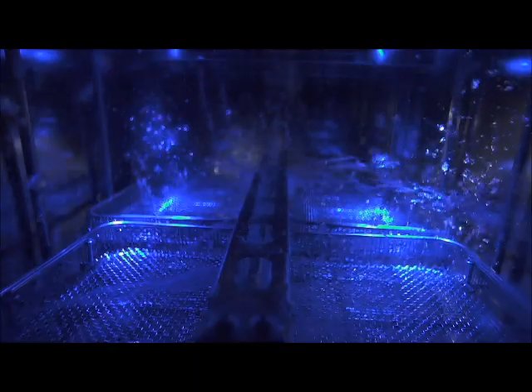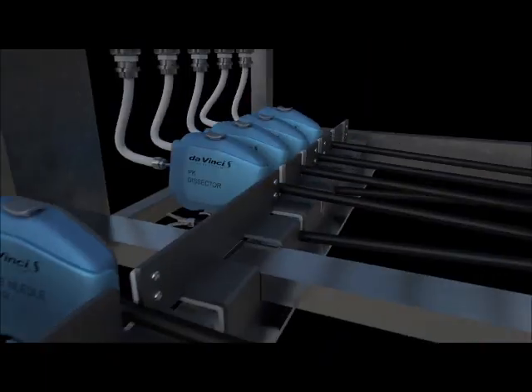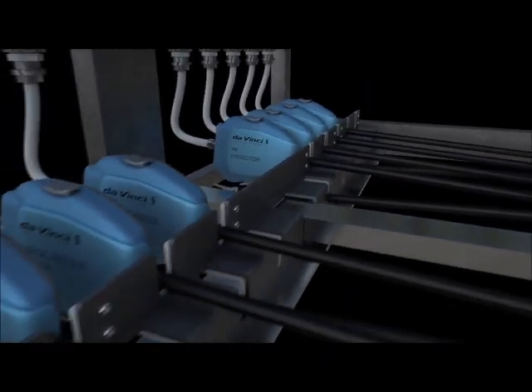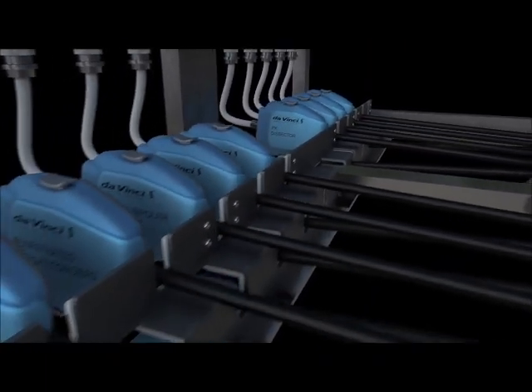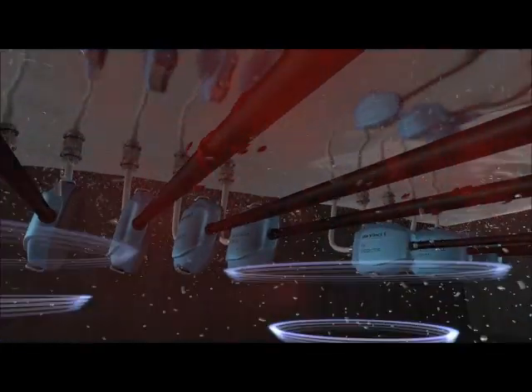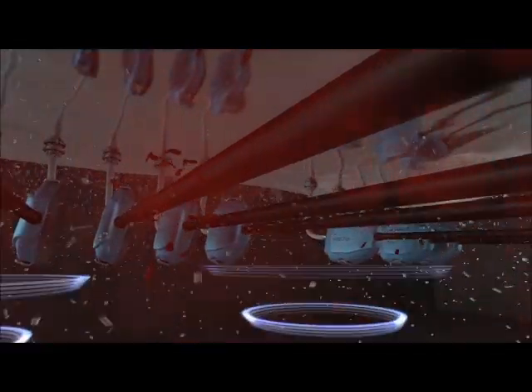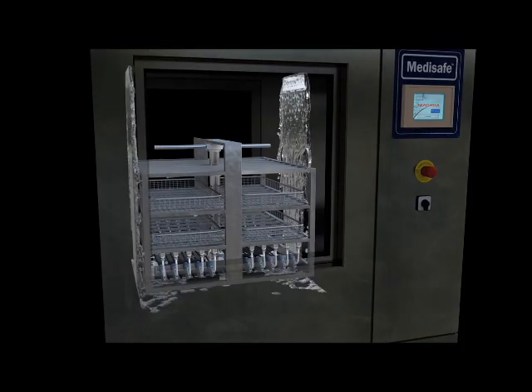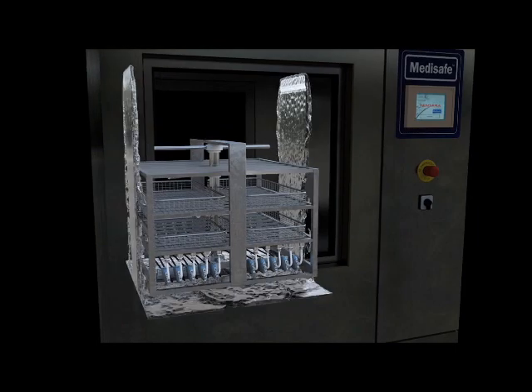Designed with high volume impingement washing, validated DaVinci flushing and sonication, low-level disinfection, and more in one convenient system, SI Niagara delivers comprehensive cleaning.